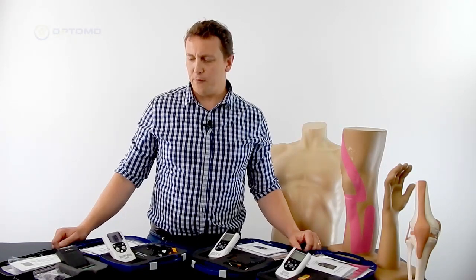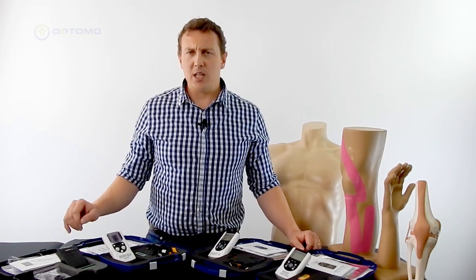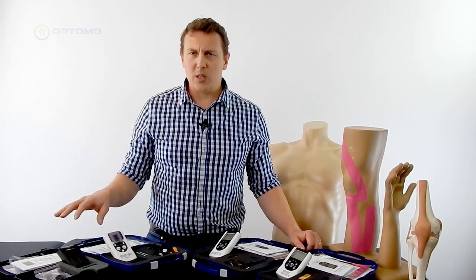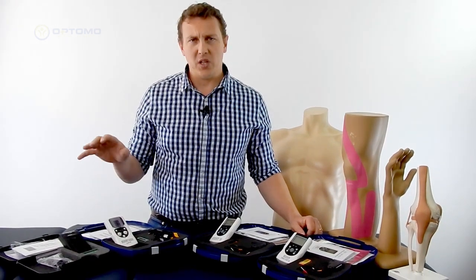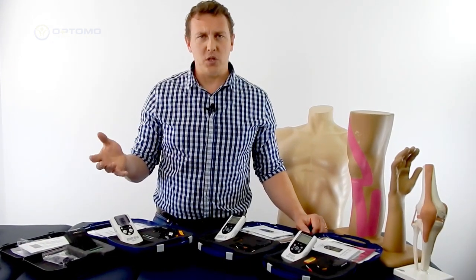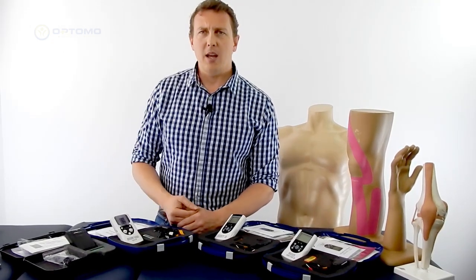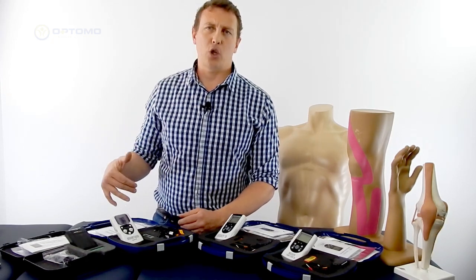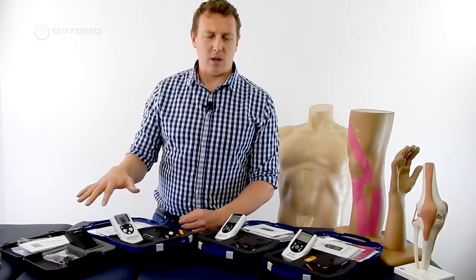In this video we're going to discuss differences between a TENS machine and an EMS or muscle stim machine. TENS stands for transcutaneous electrical nerve stimulation. It works by relieving pain by sending small electrical pulses into the skin. It works in two ways: those electrical pulses help release endorphins, which is your body's natural pain-relieving drug, and it also works through the pain gate theory, blocking pain receptors and stopping your body from sending messages of pain to the brain. So the TENS machine is primarily for pain relief.